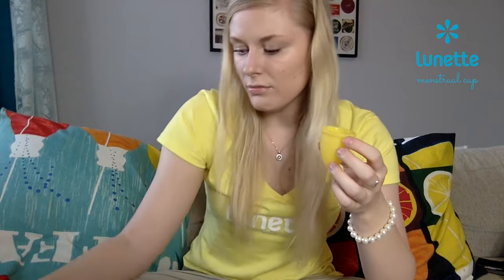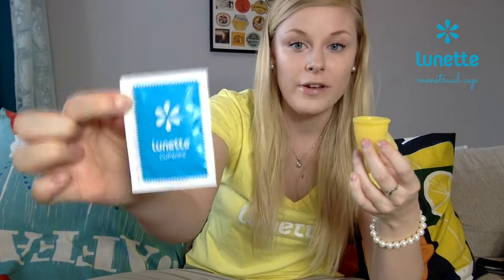Just make sure it is gentle enough so you won't break the holes. If you feel there is dried blood in it, with these brushes you can rub it as much as you want — you won't harm the cup, and they really are effective. So just rub as hard as you want. You won't break the cup.